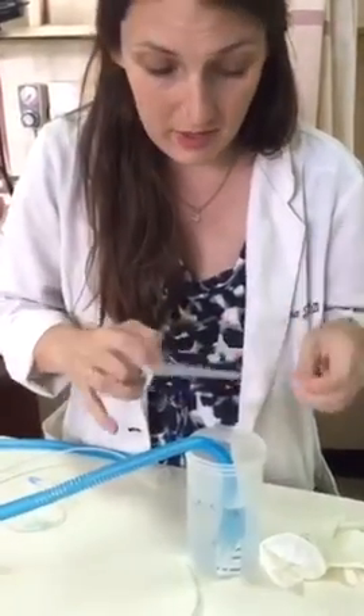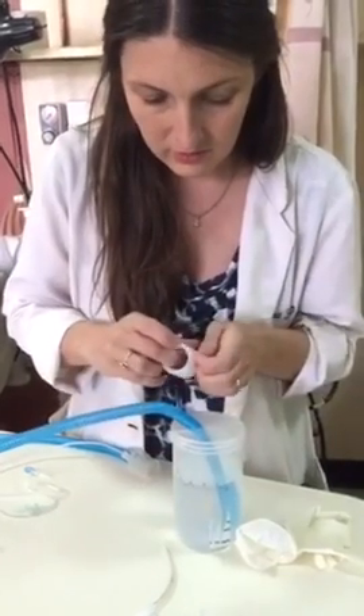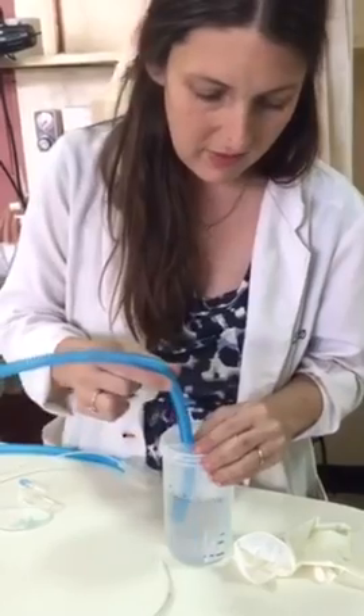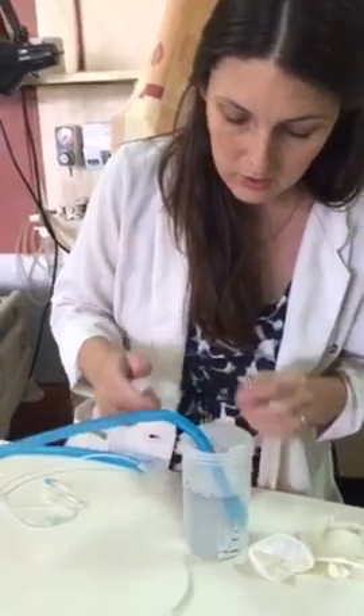Take your tape over any Sprite bottle — any kind of plastic bottle that you can cut in half. It doesn't need to be fancy. Put tape across the top; it doesn't have to be sealed, because the seal is from the tubing being under the water. This lets us pull it up and down, because your amount of pressure is how many centimeters under the water the tubing is.